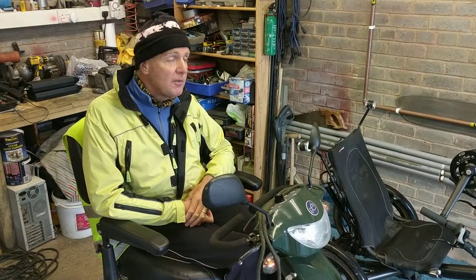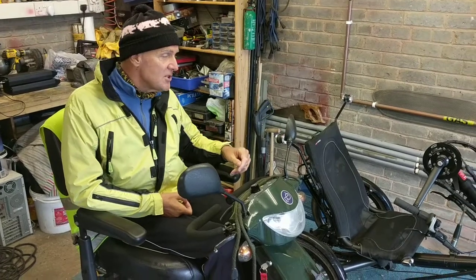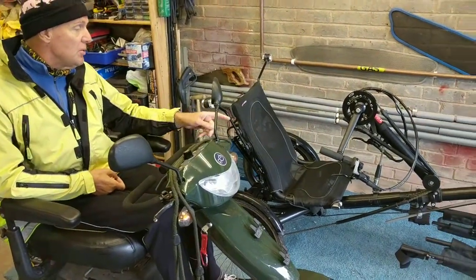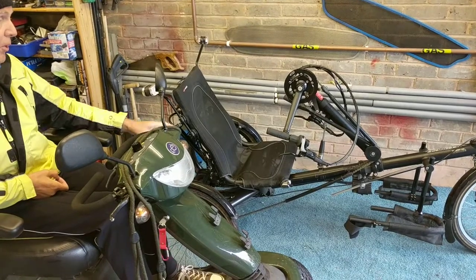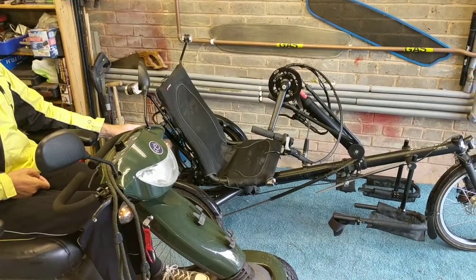So we've come up with an idea of trying to make this into a bike train where the two will connect. We take the front wheel off the bike and use it as a handbike. We're going to put a motor system onto this so I've got extra help and support when we get to the big hills.